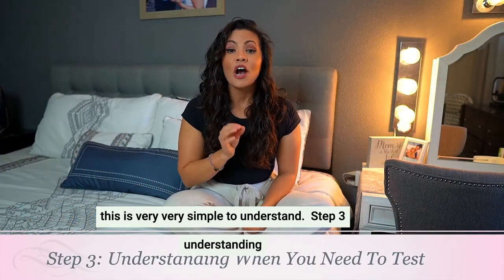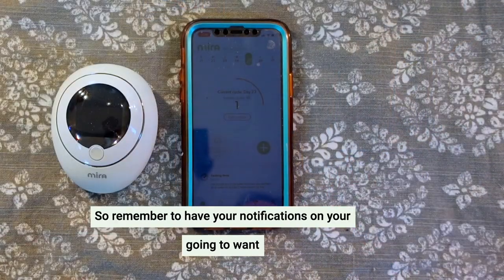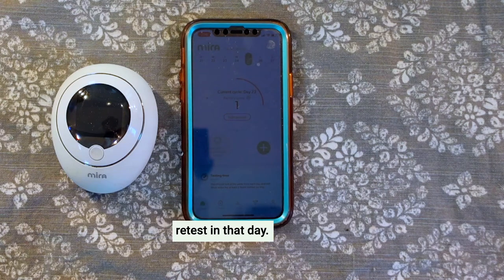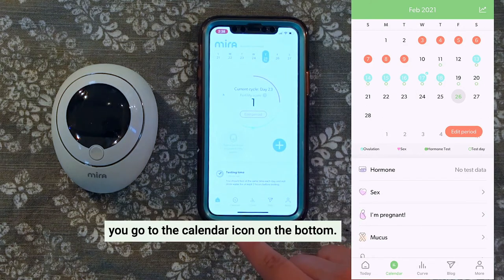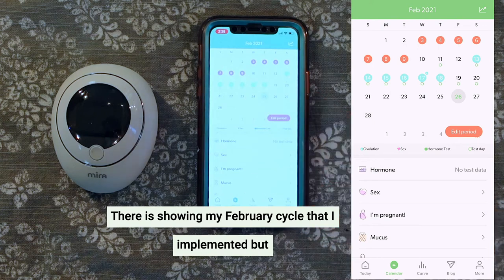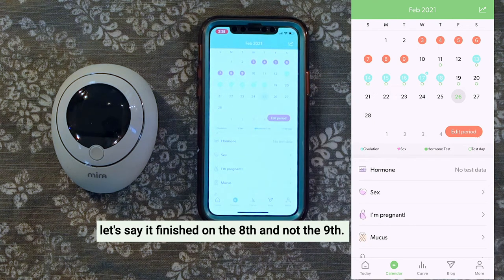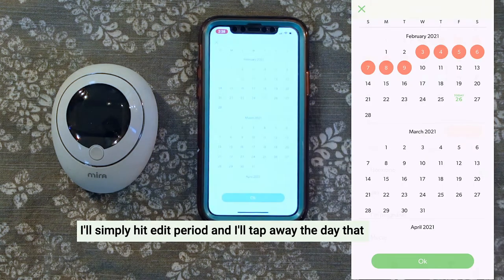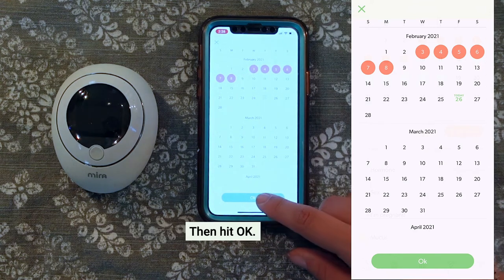Step three: understanding when you need to test. Remember to have your notifications on — you're going to want this on so it reminds you when you need to test or retest that day. So let's say you need to change the length of your period. You go to the calendar icon on the bottom. It's showing my February cycle that I implemented, but let's say it finished on the 8th and not the 9th — I'll simply hit Edit Period, tap away the day that wasn't there, and hit OK.